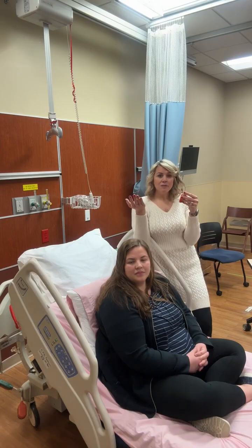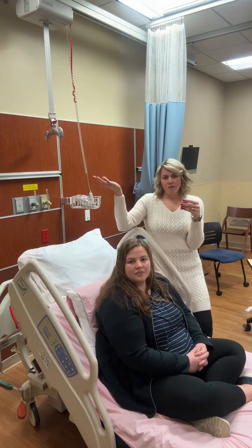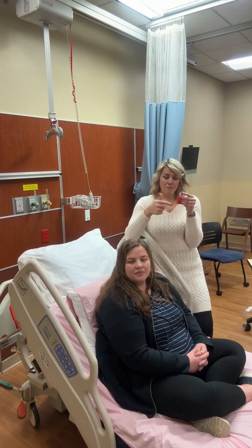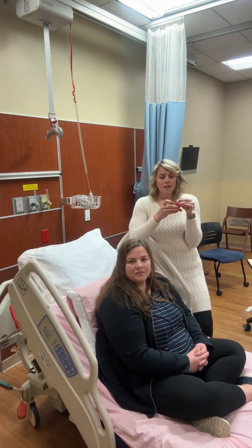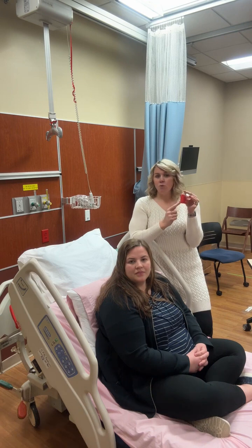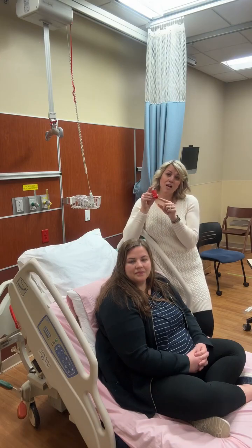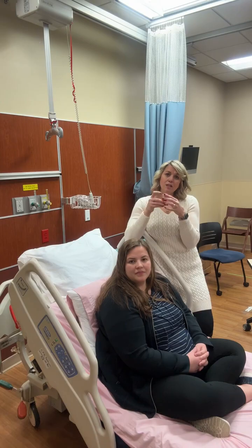Sometimes the pharmacy may or may not prime the medication. There's a propellant in here that allows it to be expelled from the canister, so if it wasn't primed, the first time they push this down, they're just getting propellant. We have to make sure the substance coming out of the canister is actually albuterol.